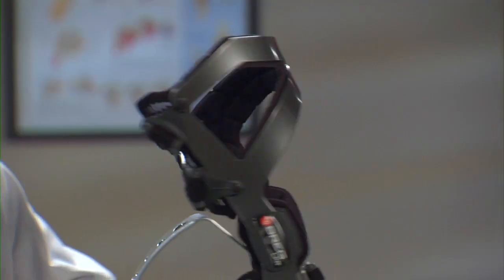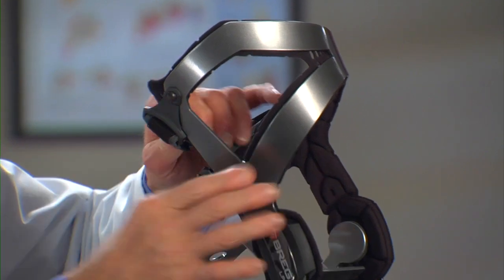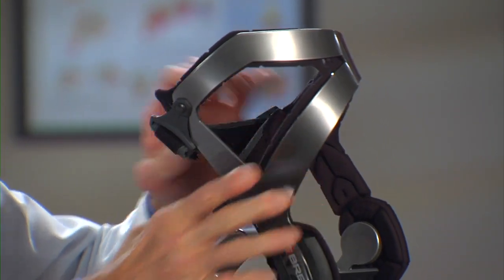There's one other thing I'd like to point out. See these strap tabs? They pivot so the straps can accommodate the unique anatomy of your leg. The LPR knee brace is state of the art and can help you enjoy your most intense activities, but it can't prevent or reduce all possible knee injuries. If you've had a knee injury, your doctor will talk to you about your treatment program and whether you need to change your activity level.